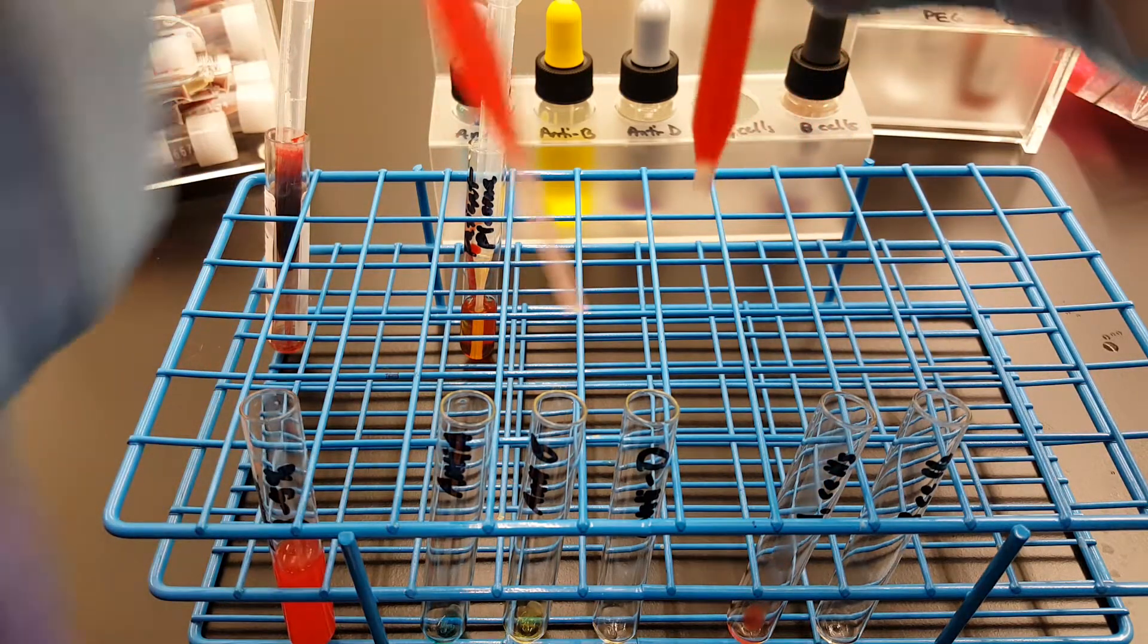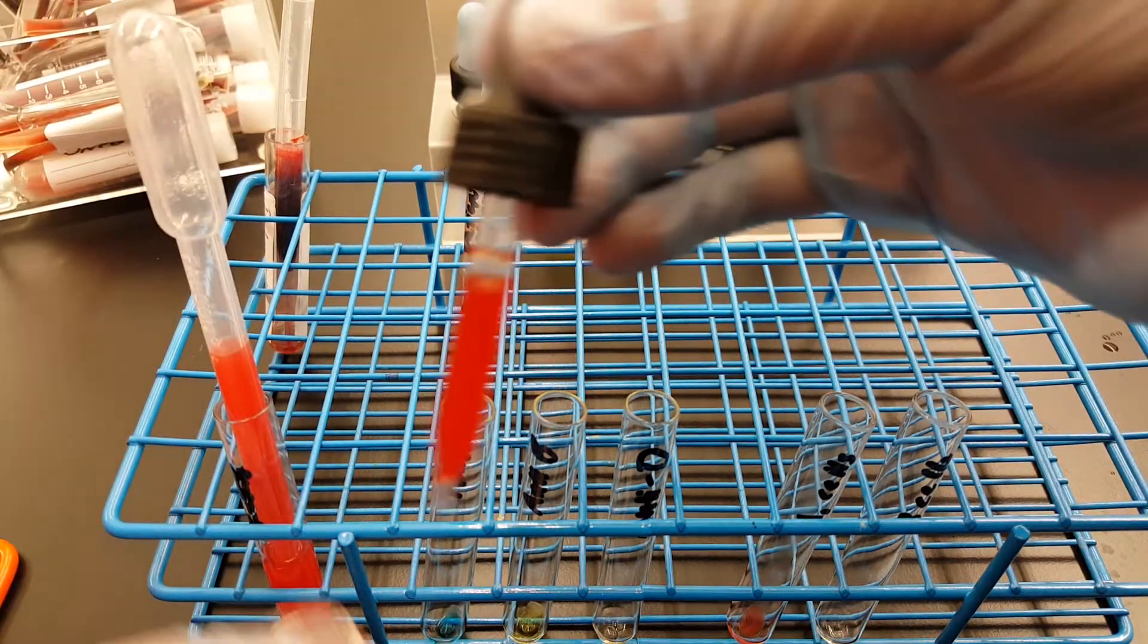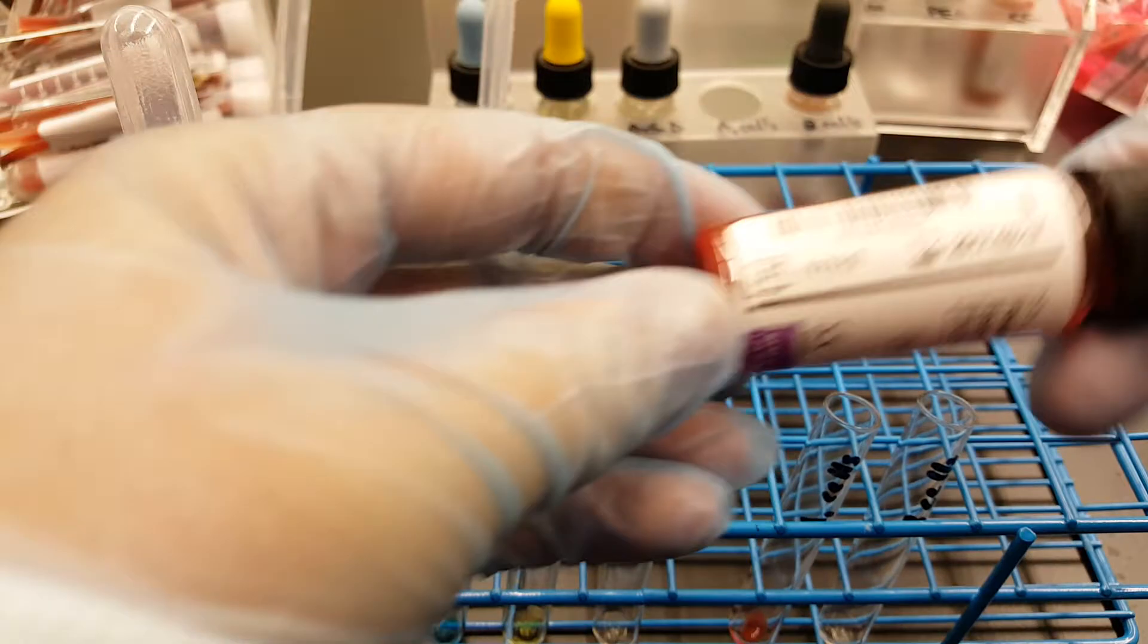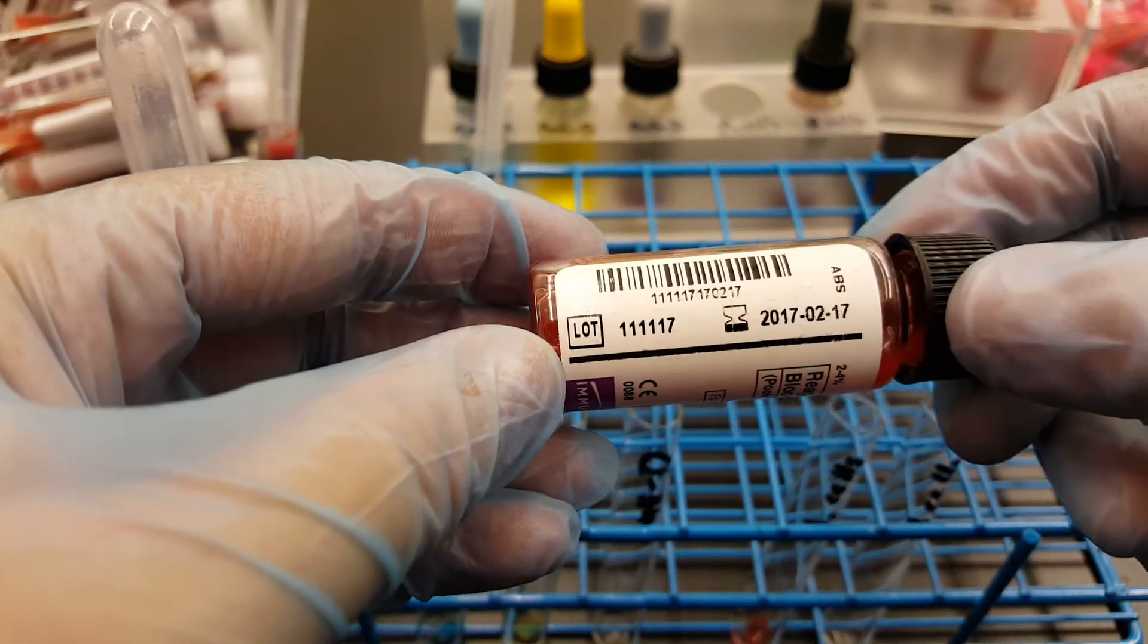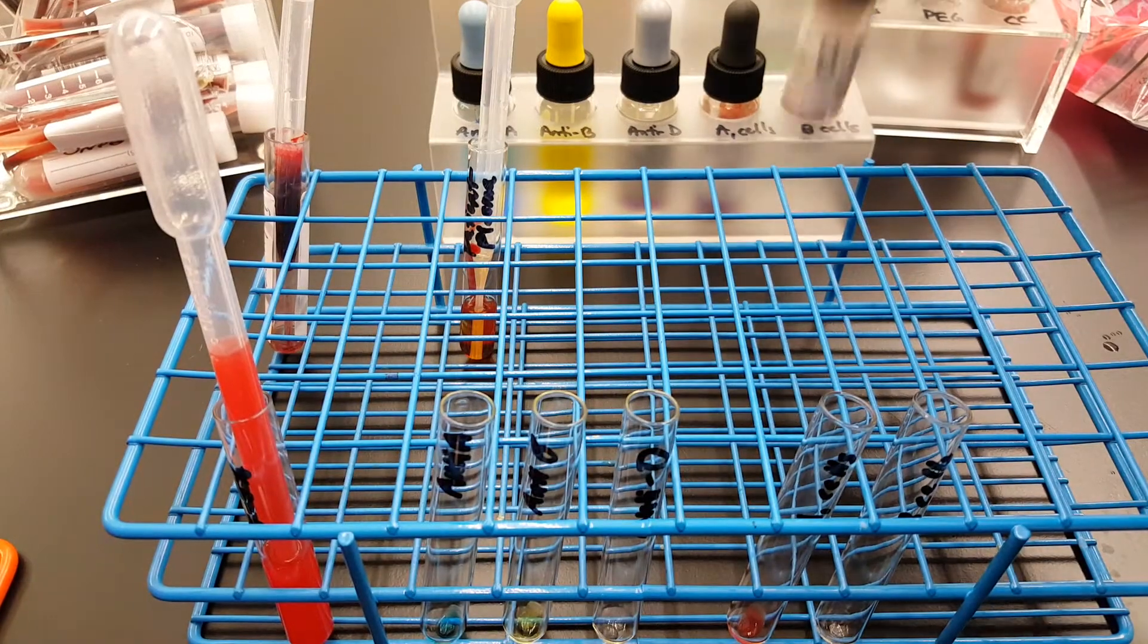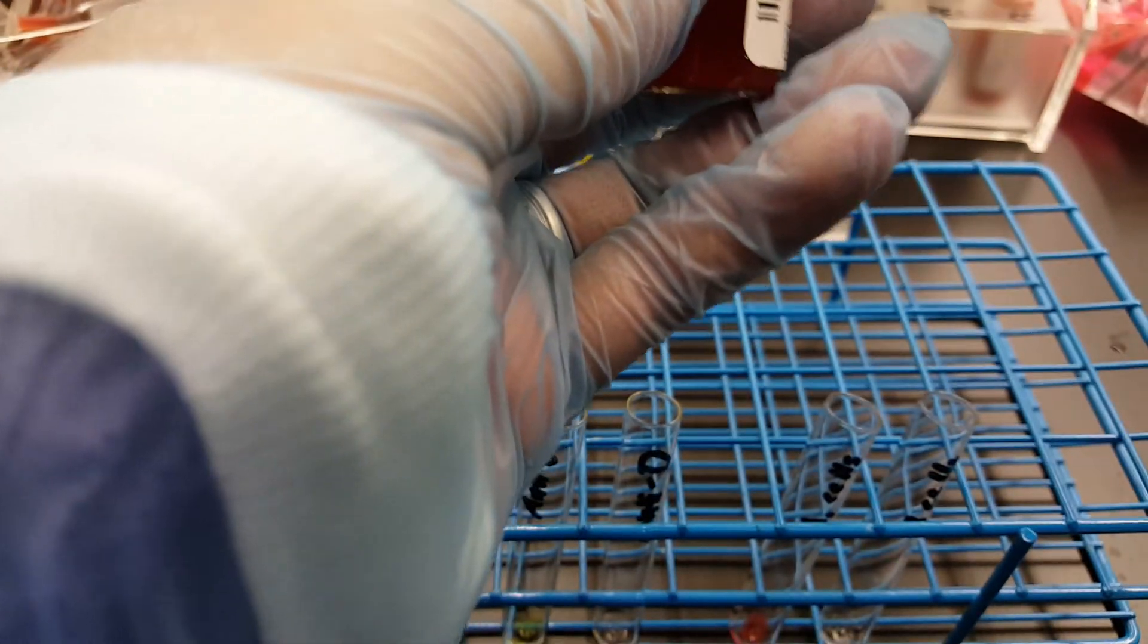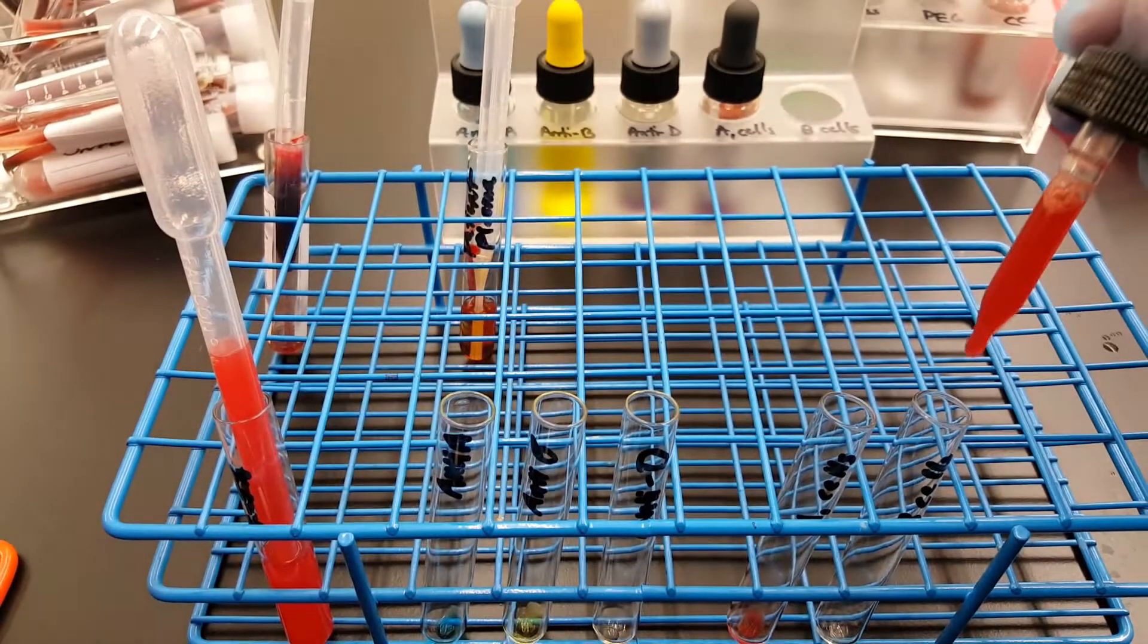And if you'll look, see it's still a little off, but like I said, these reagents are expired at this point. Today's in June and this was in February. Because they're red cells, they only last for 30 days pretty much, so my red cell suspension is probably fine since these are a little off.